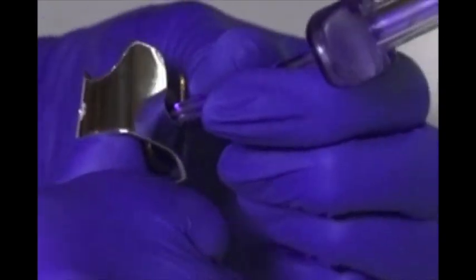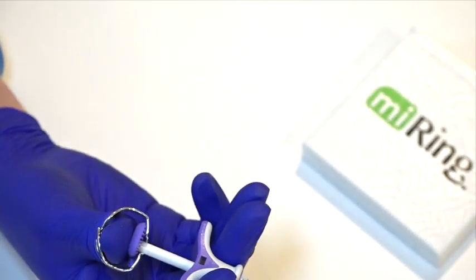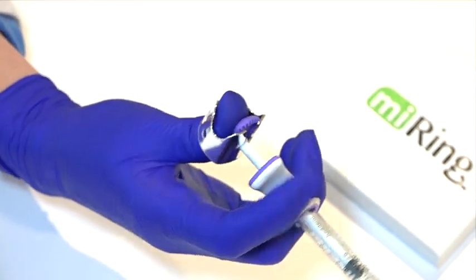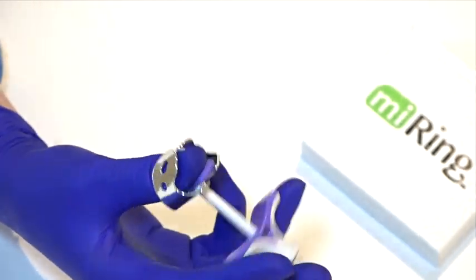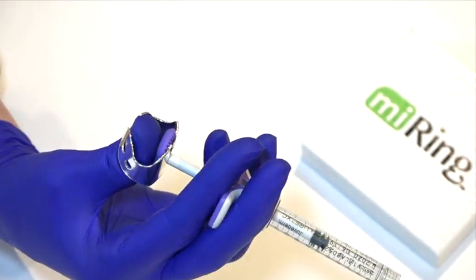Use the syringe shaft to tighten to the belly of the thumb. Practice alternate finger grips and see what works best for you. You will gain more confidence each time you use Myring.